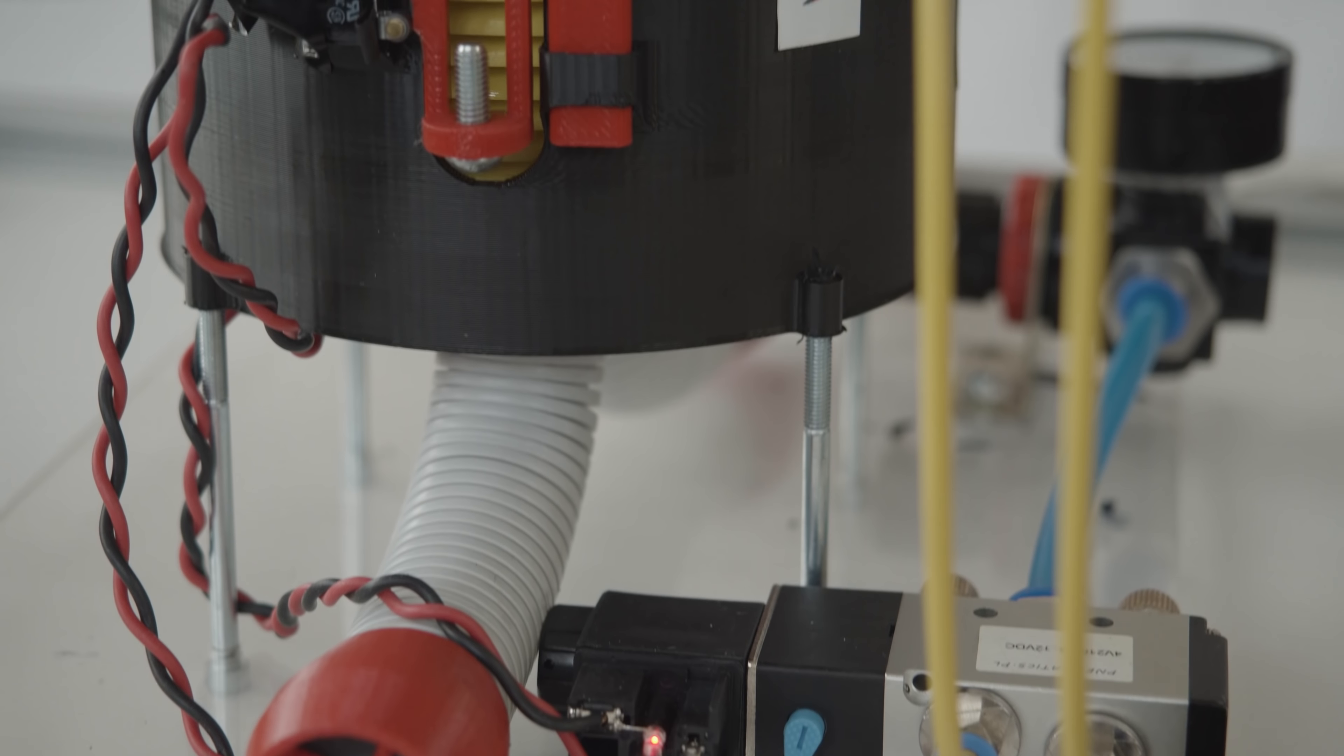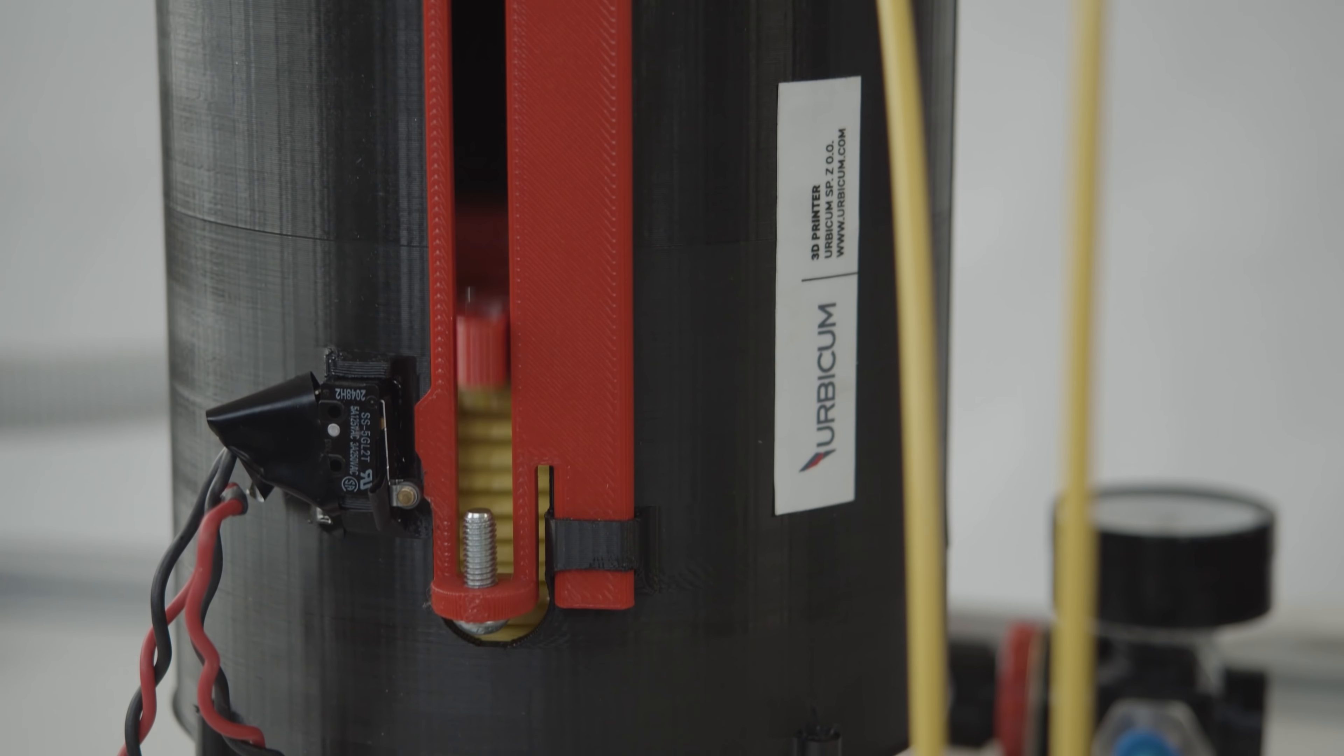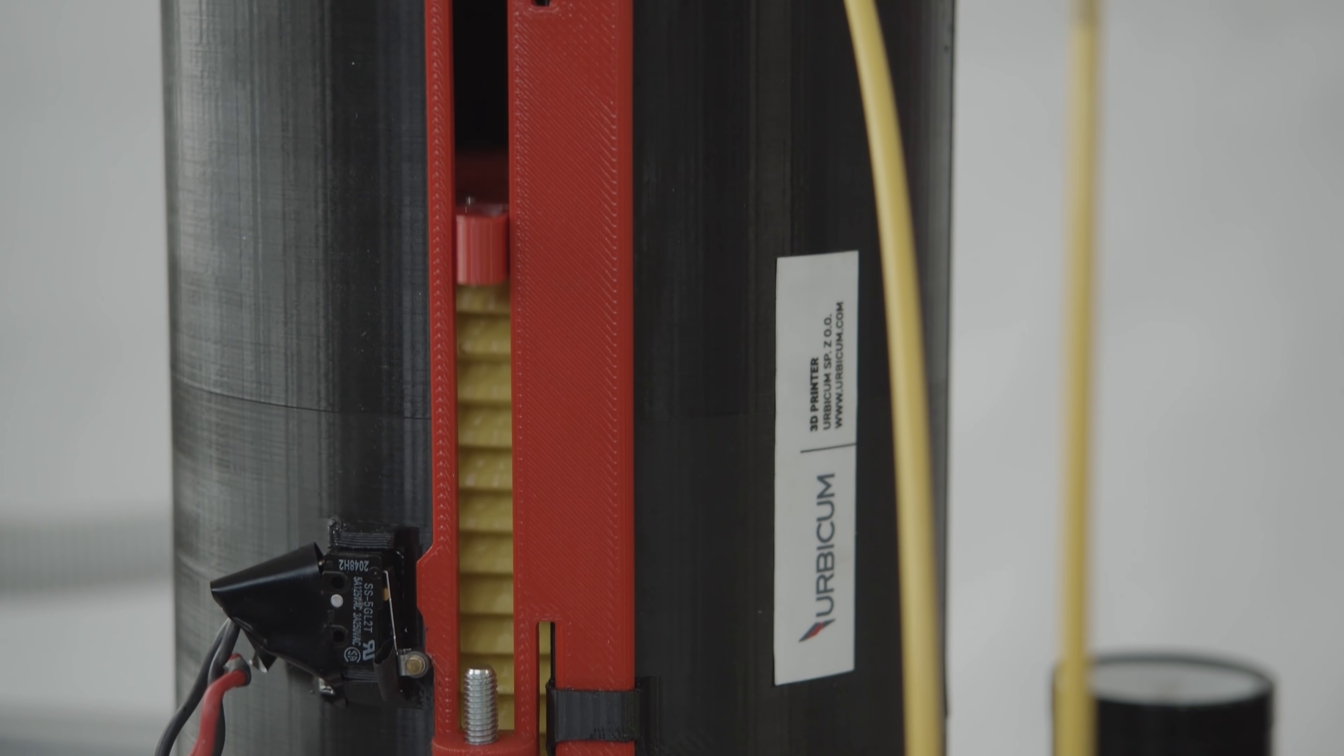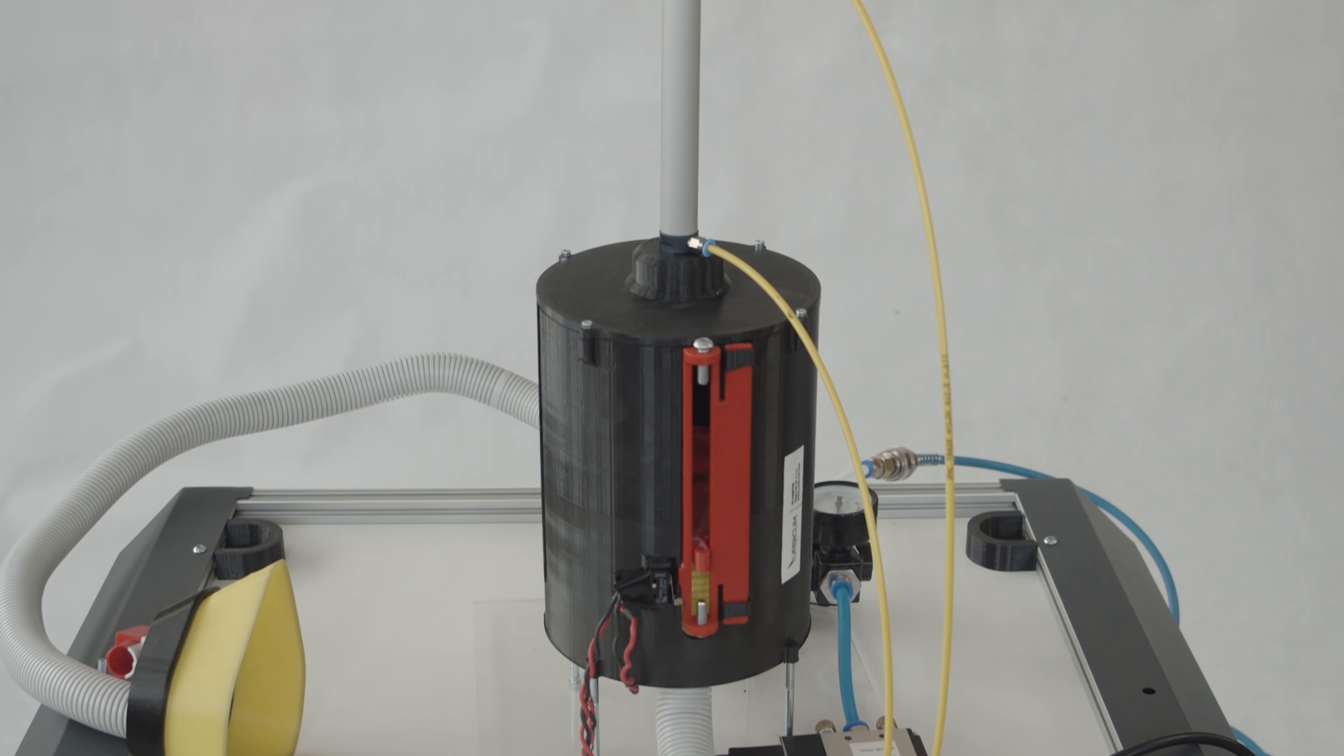We decided to produce a very simple ventilator that can be produced in any place in the world with very basic parts and a 3D printer. It's extremely simple.